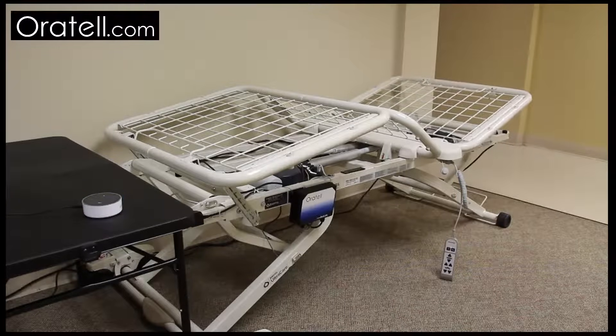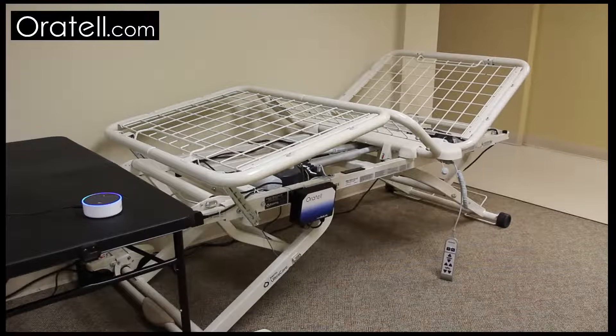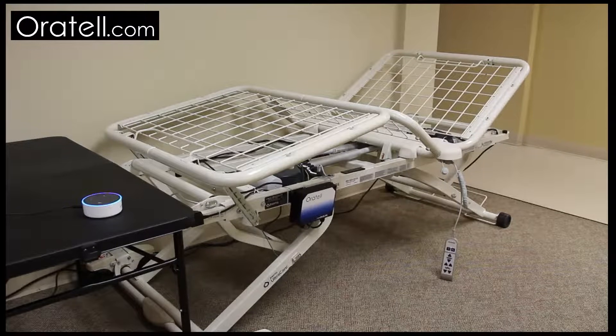Alexa, tell bed control, stop. Stopping now.